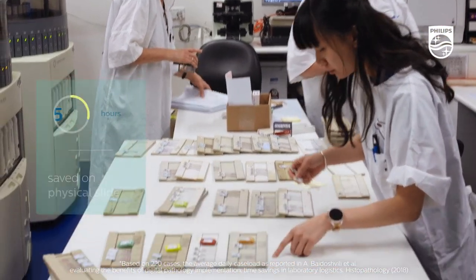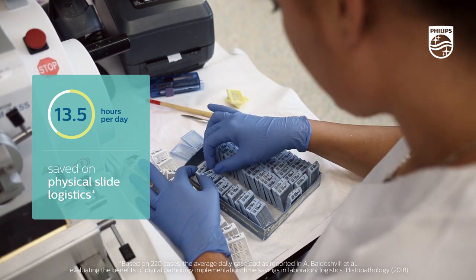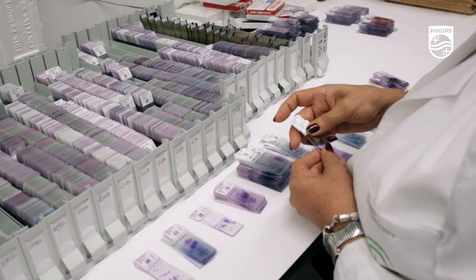Already, clinicians report saving 13 and a half hours a day on slide logistics. In the digital lab, there is no need for physical slide sorting and distribution.